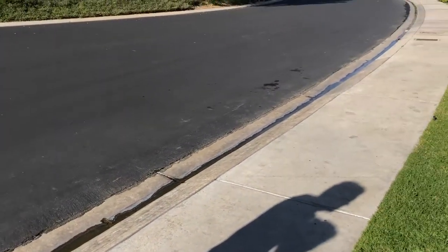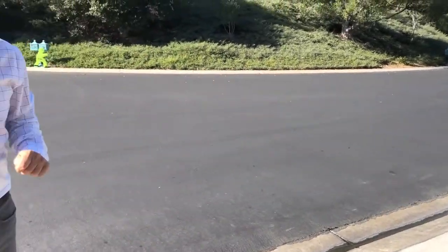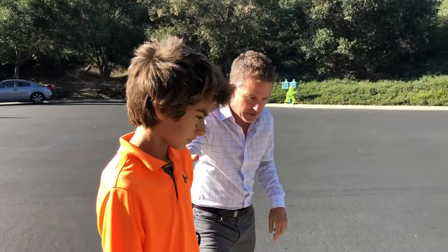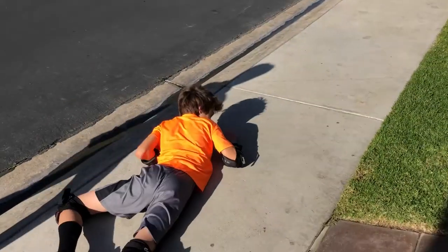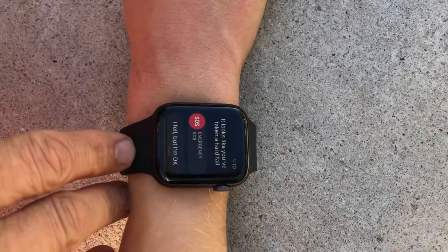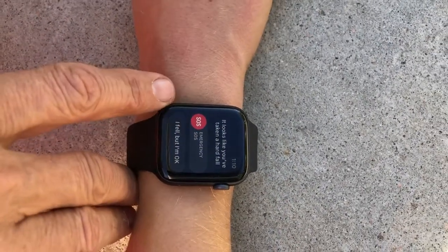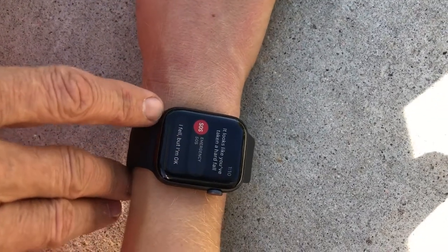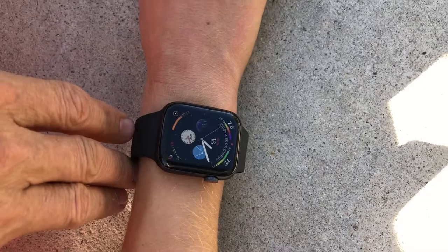On this test, we're actually going to fall on a sidewalk — a very hard surface, could be dangerous. Hopefully we'll get a detect from this kind of fall. Andreas, go ahead and give us a fall — you're walking and then you trip. We got it. Again, we have the SOS; if you slide that over, it detects your emergency or calls your emergency contact. Or we have 'I fell, but I'm okay,' which will reset it.